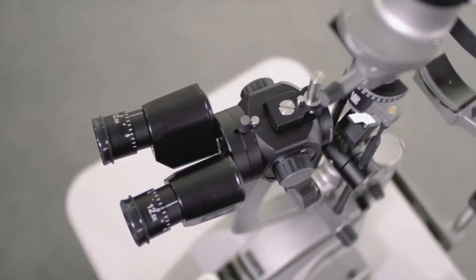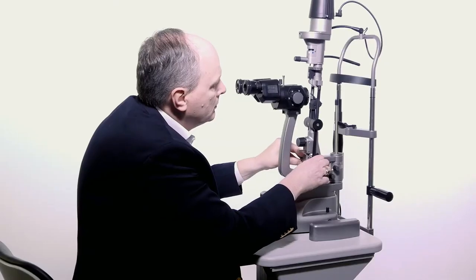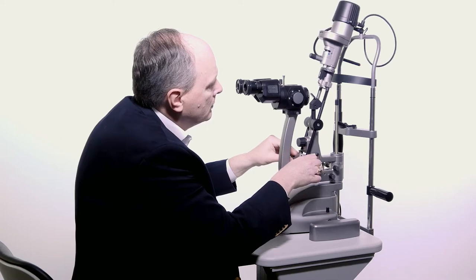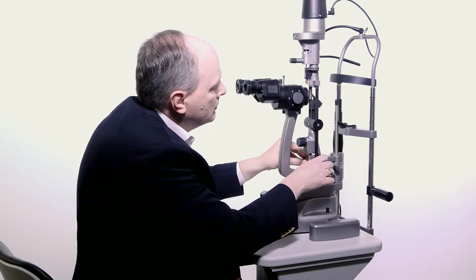The tower has the ability to tilt toward the user and positively locate at 0, 5, 10, 15 and 20 degrees.